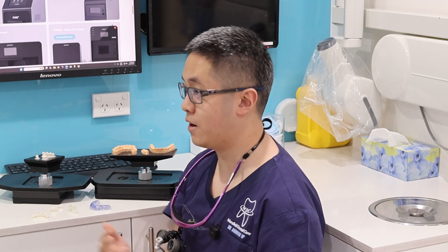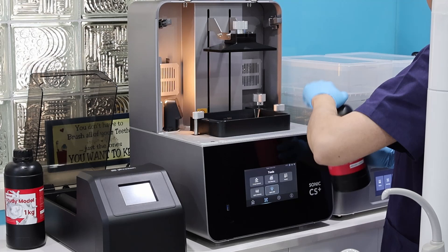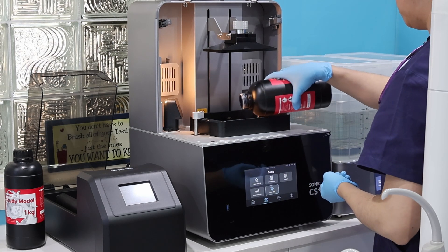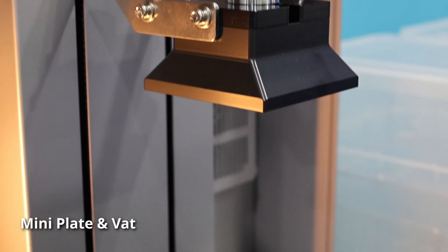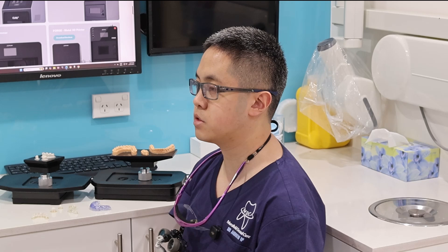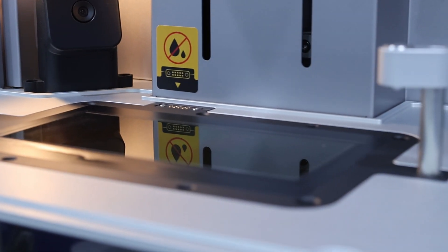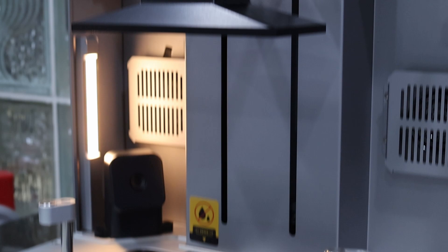I've tested a lot of 3D printers in my career — in fact, I've used over 35 different 3D printers so far, and that number is going to increase. The CS Plus ranks really highly amongst them. It's pretty easy to use once you get the hang of it. You have a lovely 385 nanometer LCD, which results in some very crisp prints. You have a mini plate and the standard build plate, which come as standard — not an optional extra you have to purchase additionally. It's got VAT heating, chamber heating, an air purifier, smart leveling, and debris detection — all the things you'd find in a printer that is double the cost.